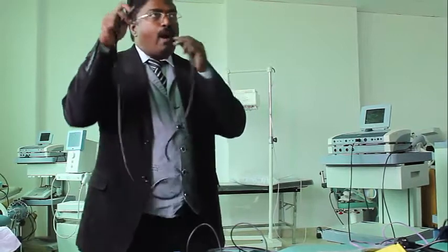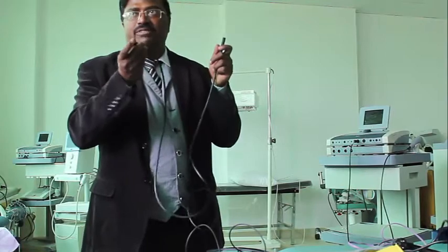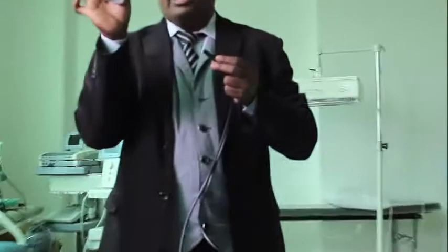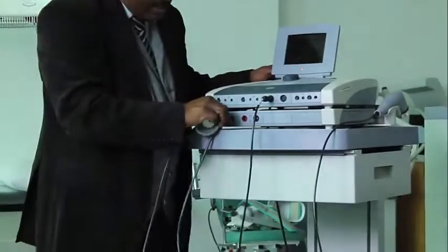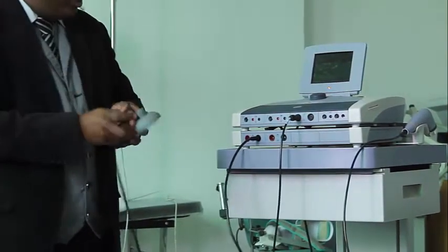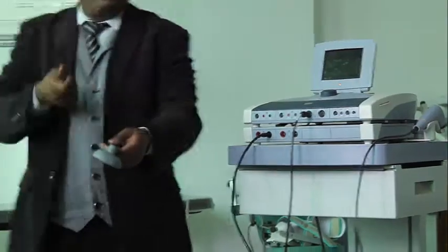So this is a hole. There is pressure which can be applied. This vacuum has to be applied to the electrodes. See the hole? So this vacuum will be applied to the electrode to connect it. And this vacuum electrode will go here. There is also a hole. So when you switch on the machine, it gives a vacuum, and this electrode will stick to the skin. That's why they are called vacuum electrodes.